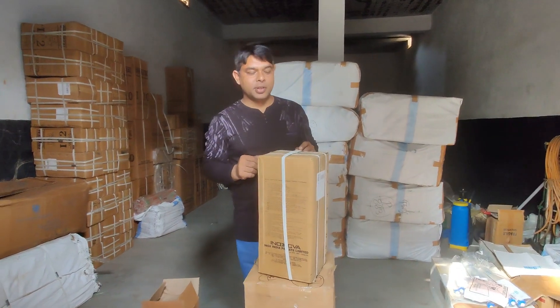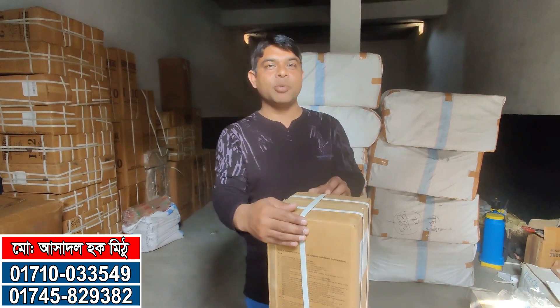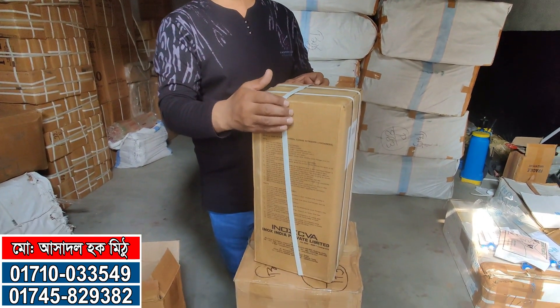Hello, welcome. I am from the DIGI Enterprise. I am here with my veterinary products and my unboxing.